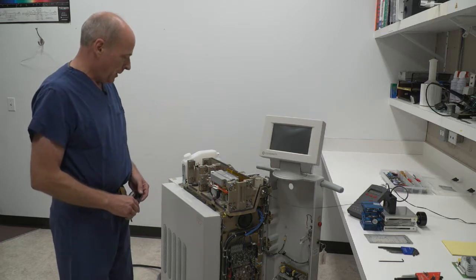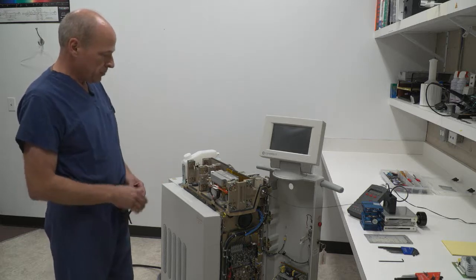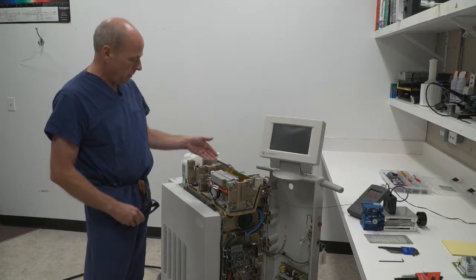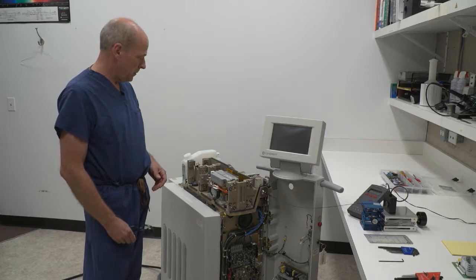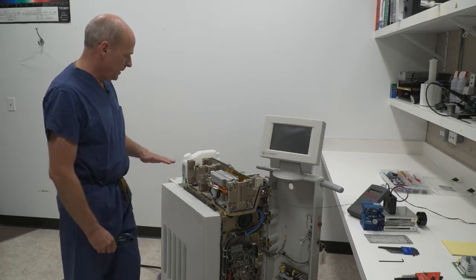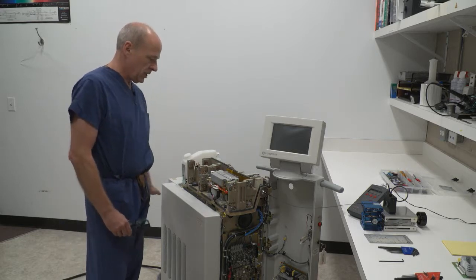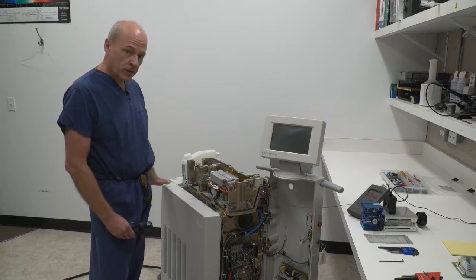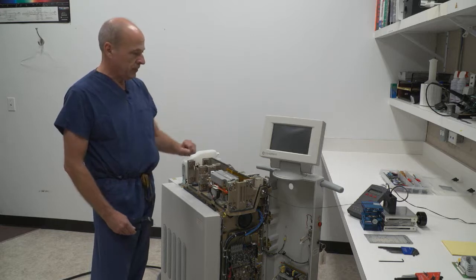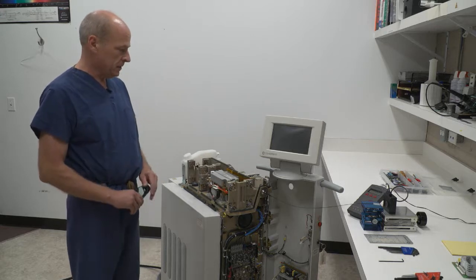This laser was recently rebuilt by us. We put four new bricks into the unit and prepared it for a customer. I went through the complete system changing the deionizing filters, the water, four new bricks. I've aligned all of the optics and calibrated the system.